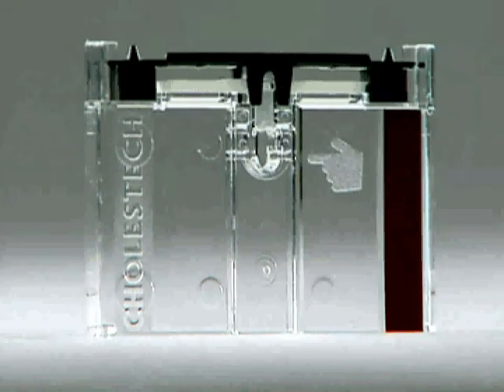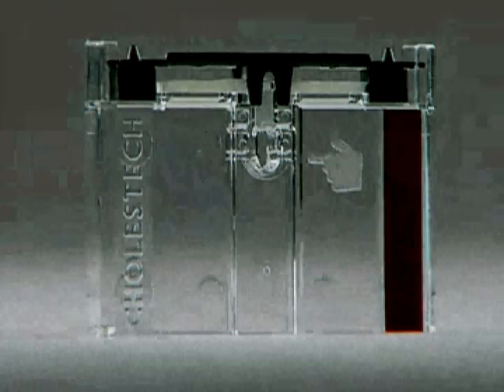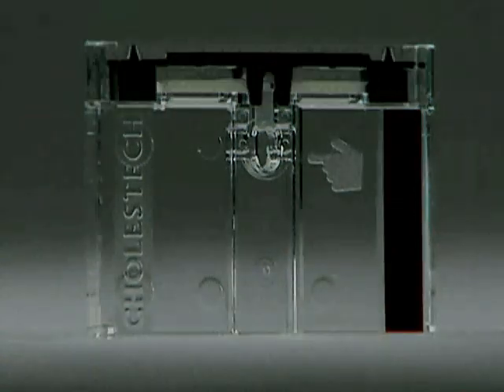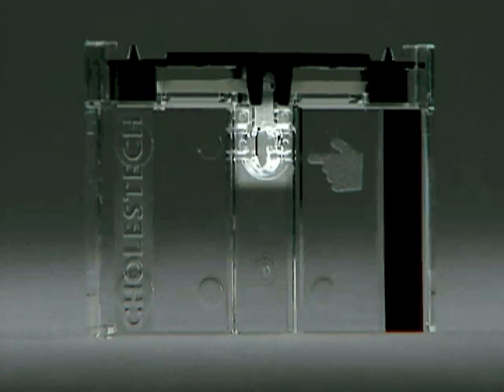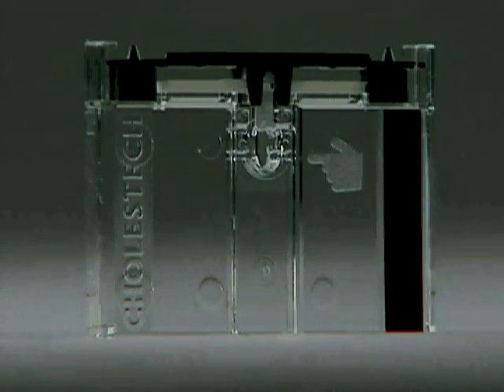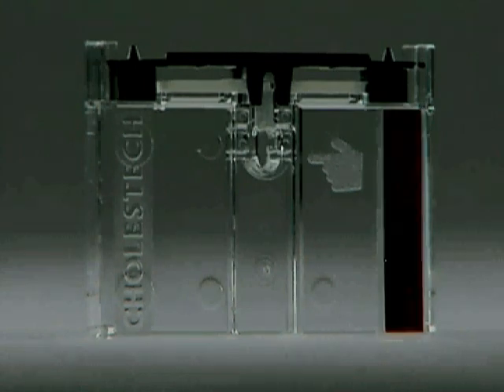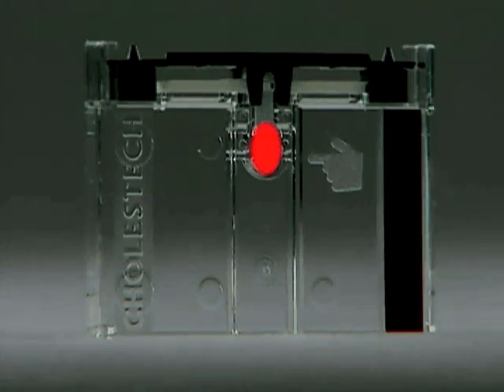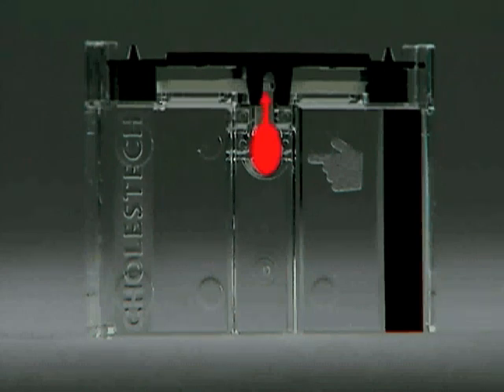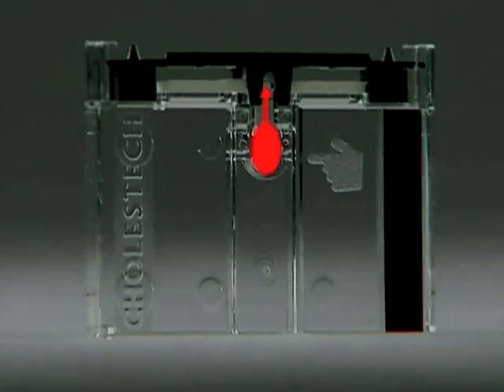Disposable test cassettes are used with the analyzer. Each test cassette has two parts: the main body and the reaction bar. The main body contains the sample well, where the blood sample or control is dispensed, and the magnetic stripe. The unique cassette technology separates out the red blood cells from the plasma. The plasma is then transferred to the reaction bar to test specific biochemical reactions.